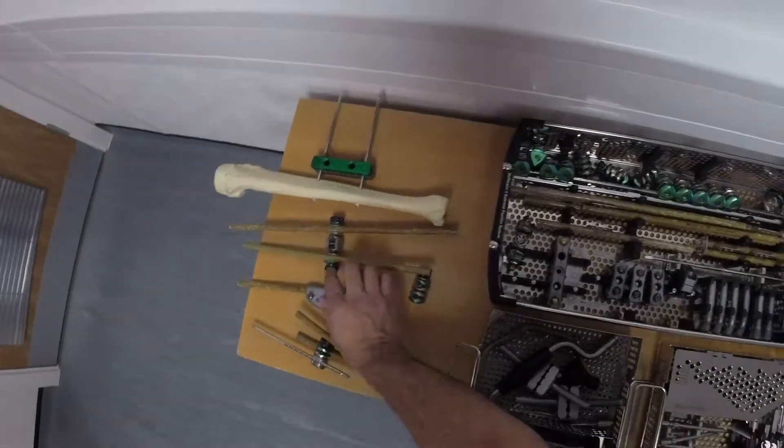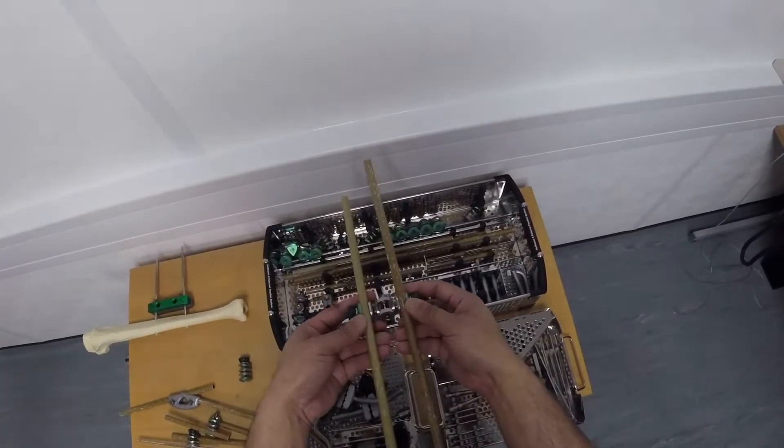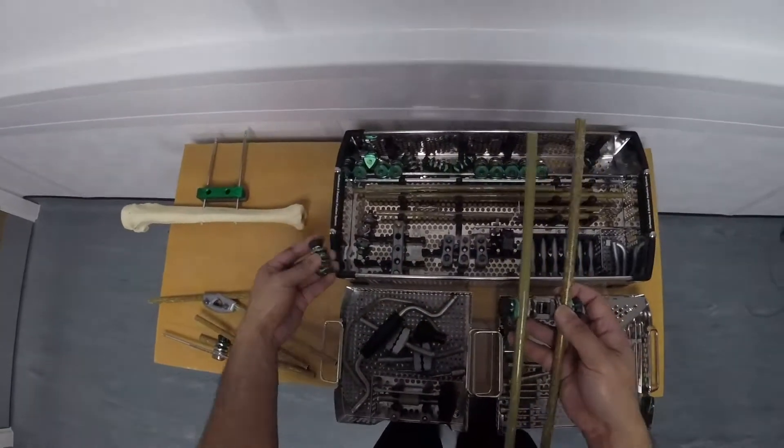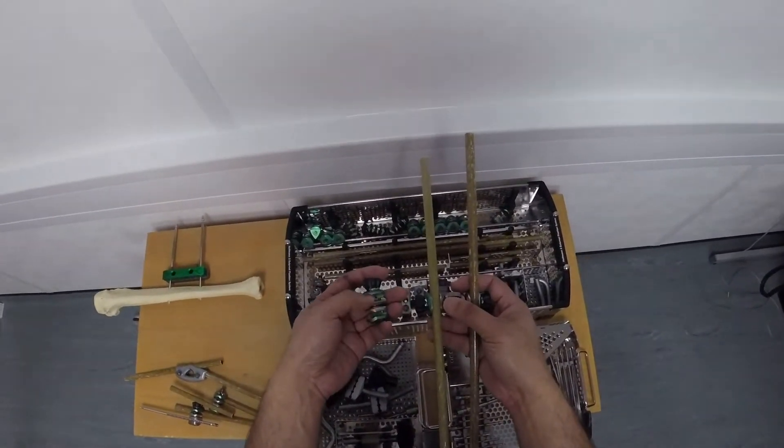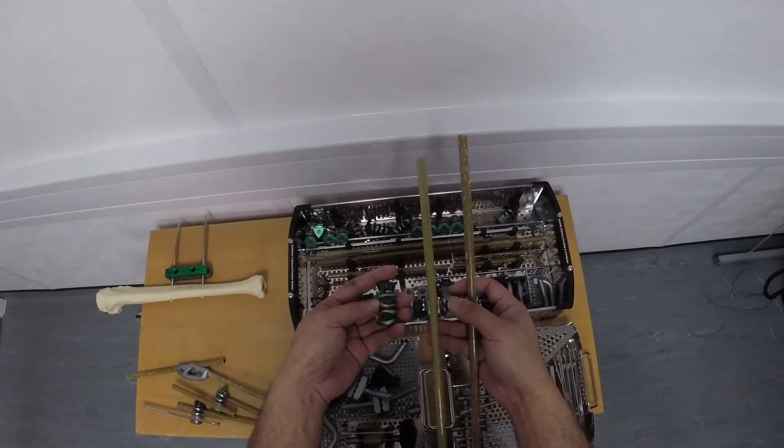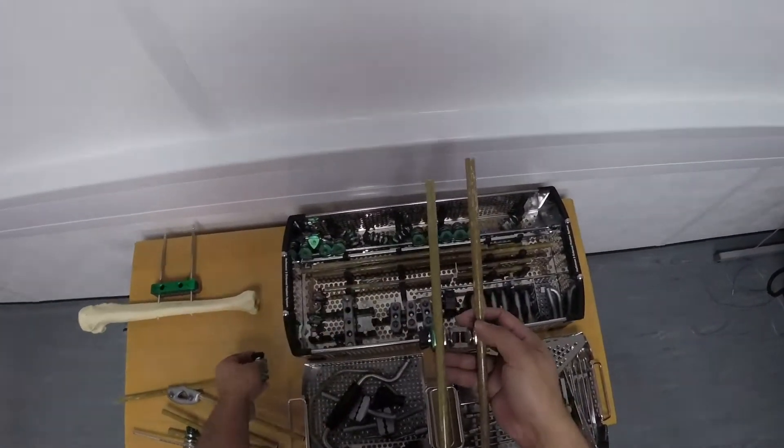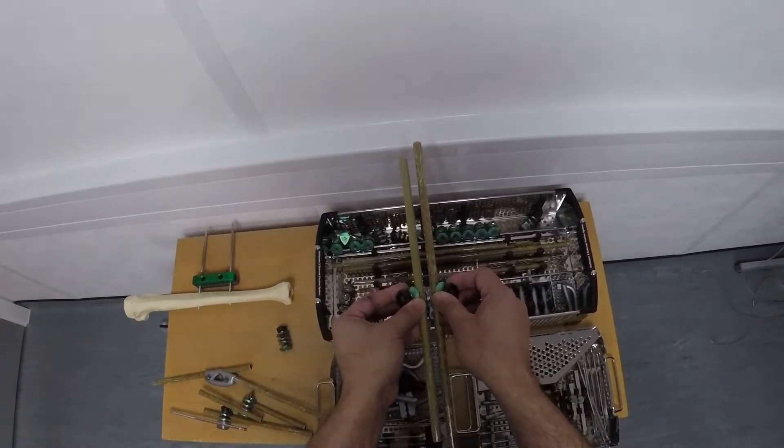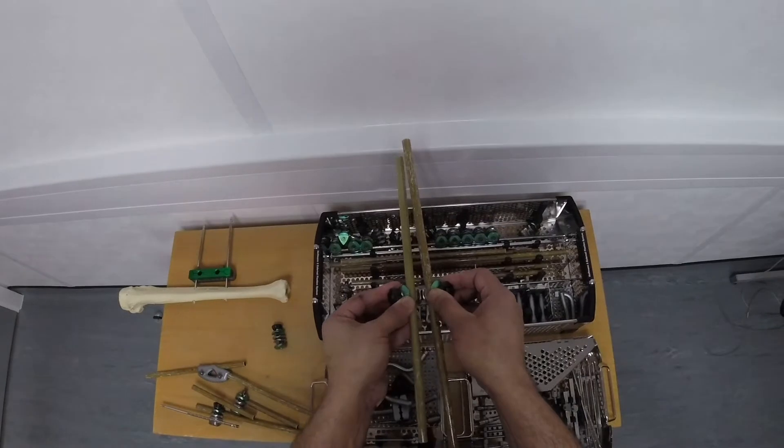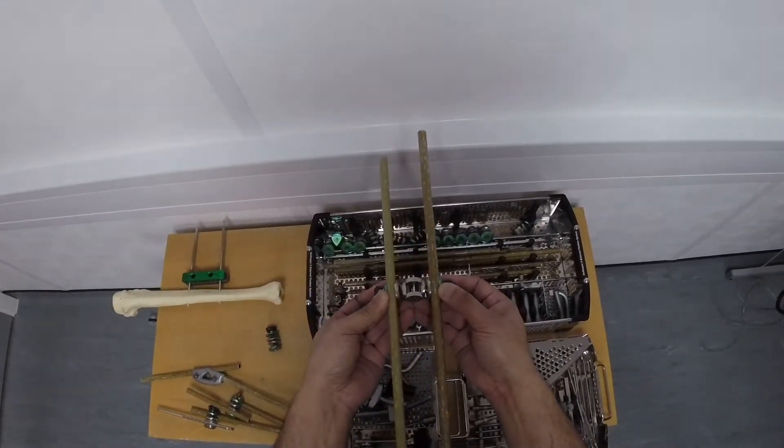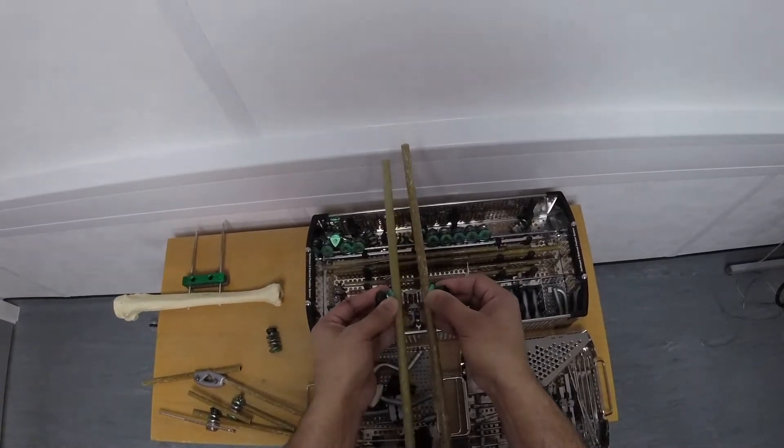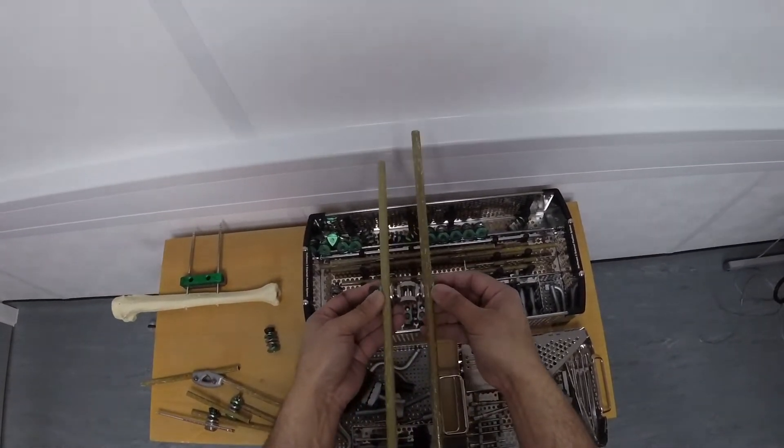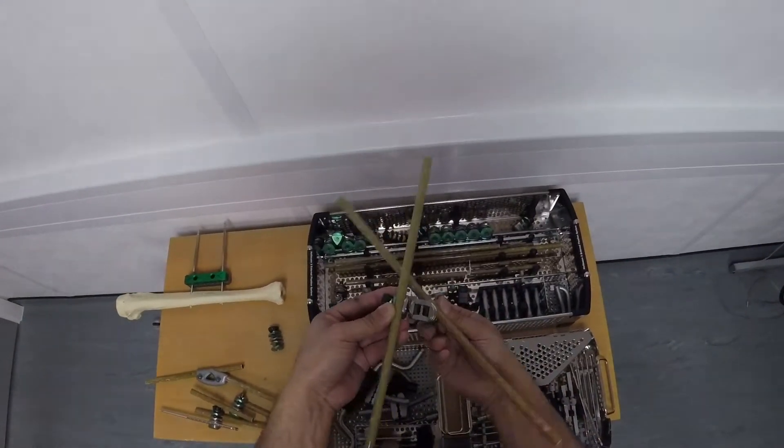The other type of fixator is even more flexible. So if you look at the normal delta clamp, there's a set distance between the two parts of the delta clamp. With this type, it's even more flexible. I can move my external rods further apart or bring them together. So this is even more flexible. And again, I can move it in any plane that I want to.